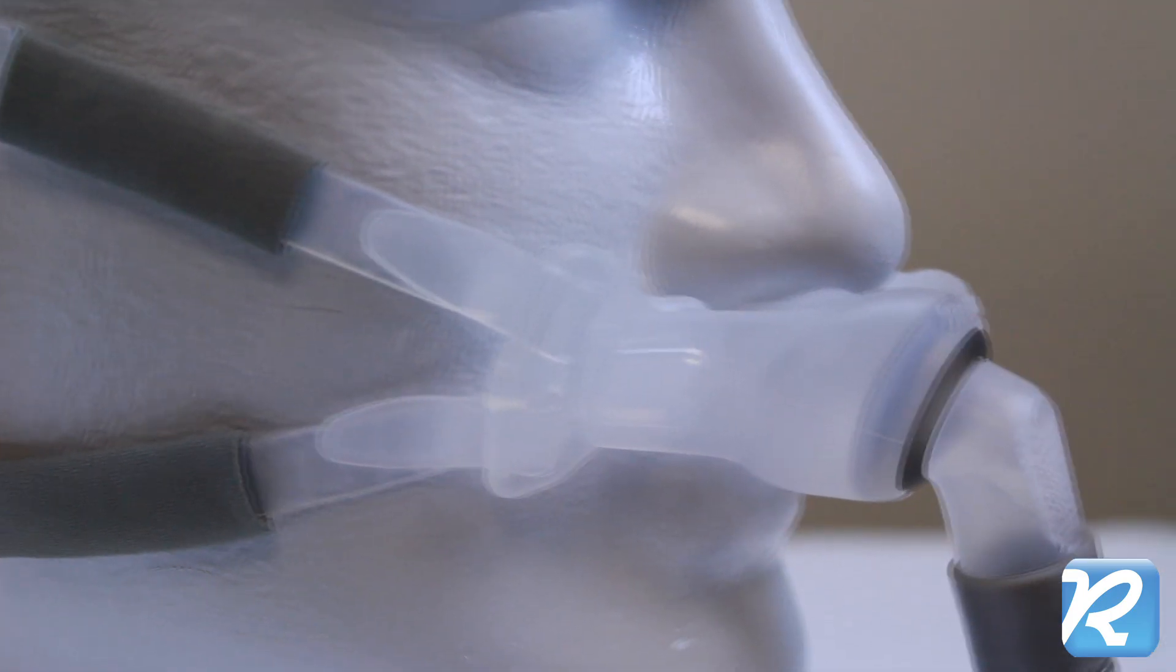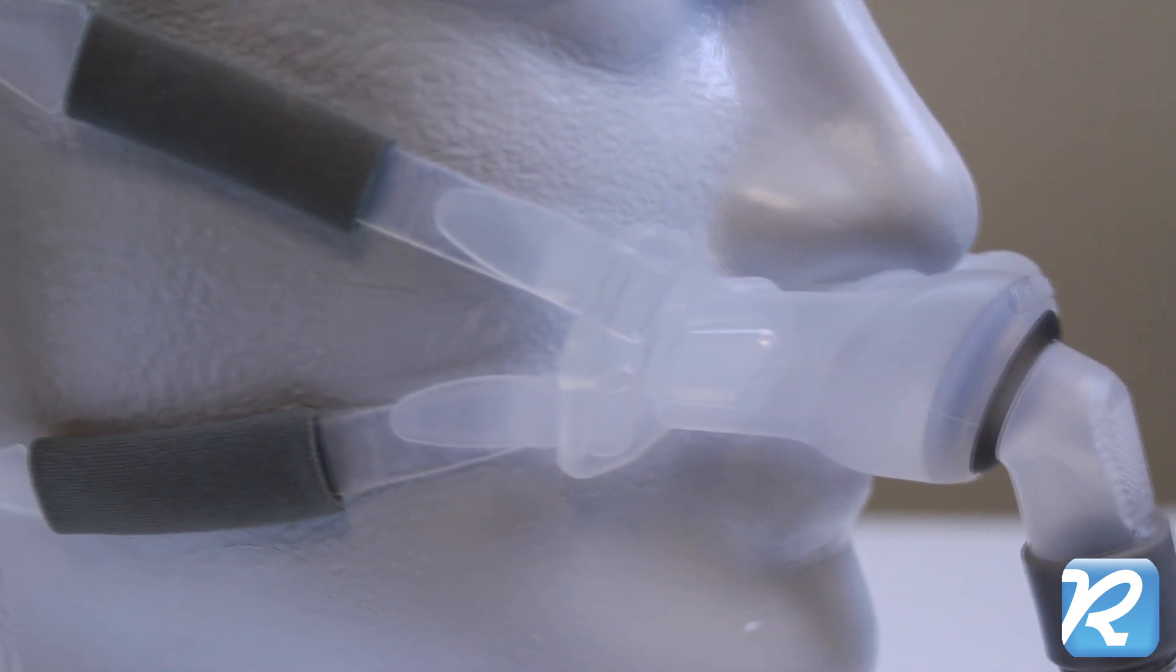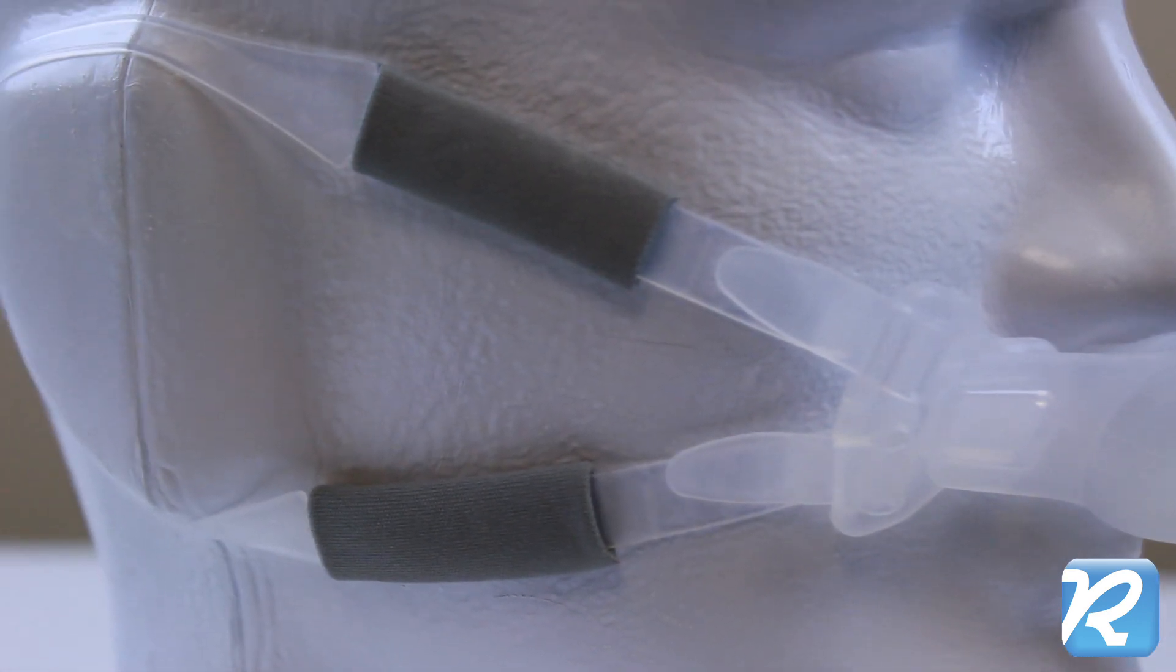The Bella loops attach to springy nasal pillows from the SwiftFX at the lock and key connection and include padded gray cheek straps.